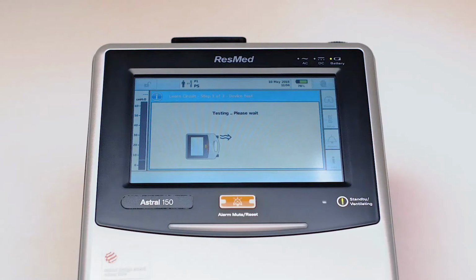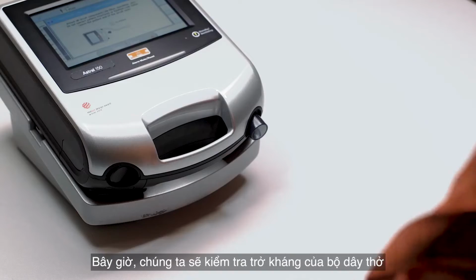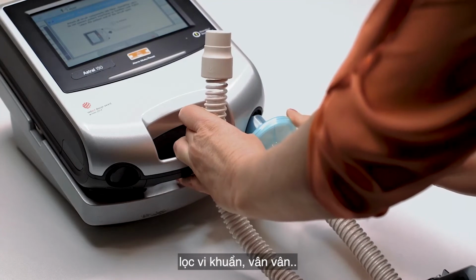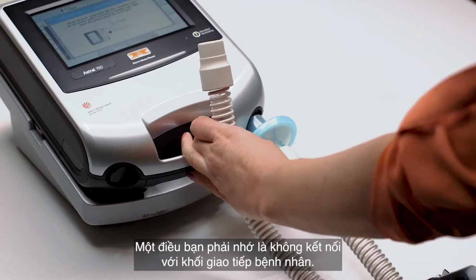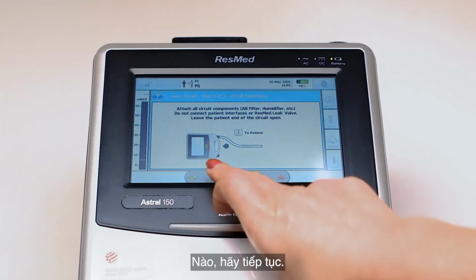We'll press continue. At this point, the device is going to do a self-test. At this phase, what it's actually doing is checking the pressure and flow sensors. Now we're going to connect our circuit components. That would include our humidifier, antibacterial filter, etc. The one thing that you want to make sure is not connected is any patient interface. So any mask, any heat moisture exchanger. So let's continue.